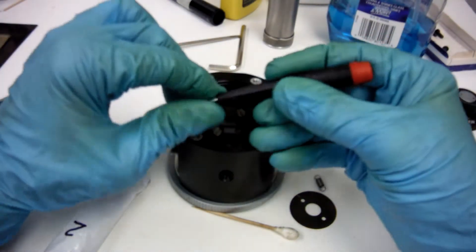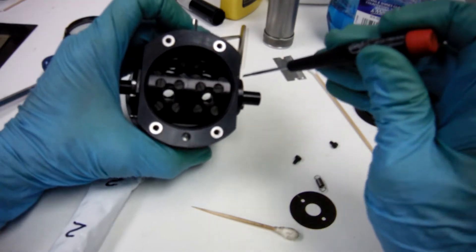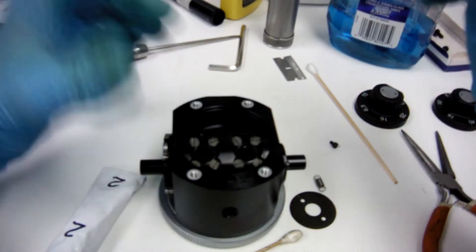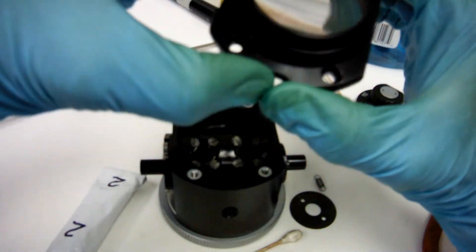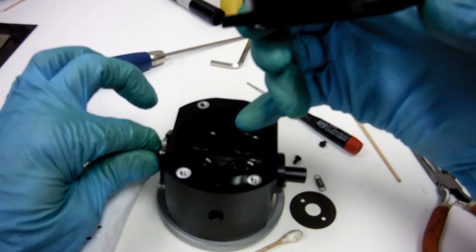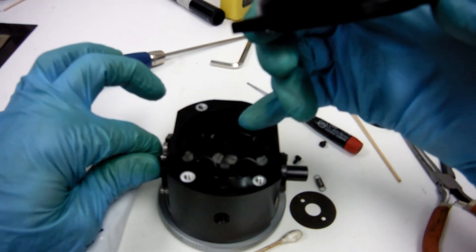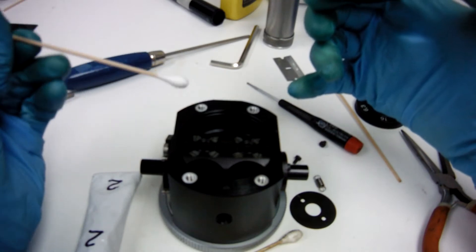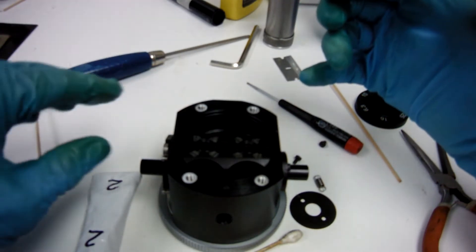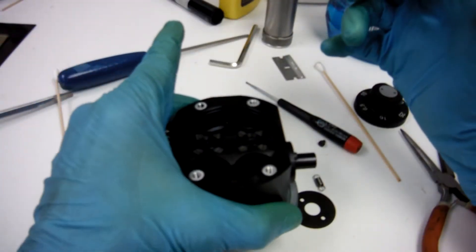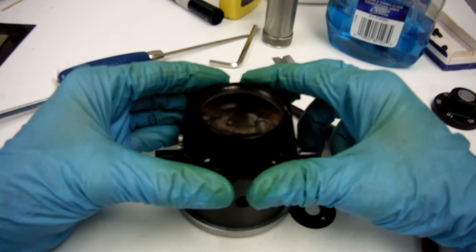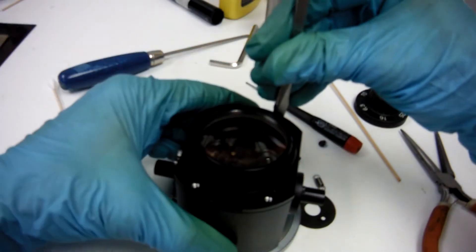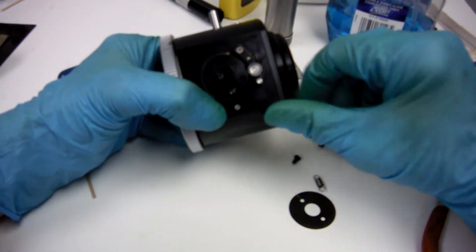Let's lock it back in with our jeweler screwdriver. We can put our lens back on. If you want to check your lenses in case you got them dirty or greasy, you can check them and clean them with your cotton swabs and Windex. But you can do that later on the other side too, so it's okay. For the sake of time, I'm not going to put all four in, but that's what we would do. I'm going to put all four screws in. Come over here.